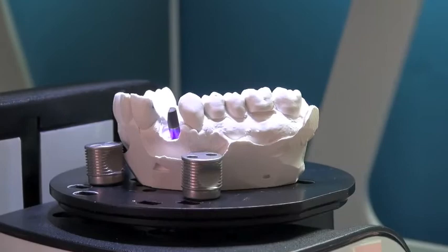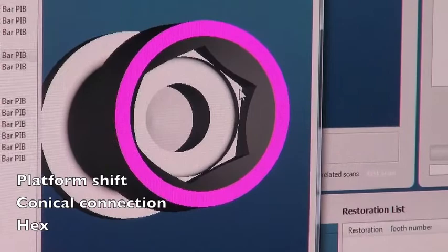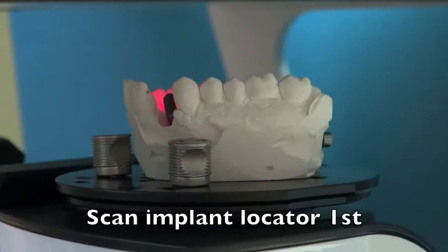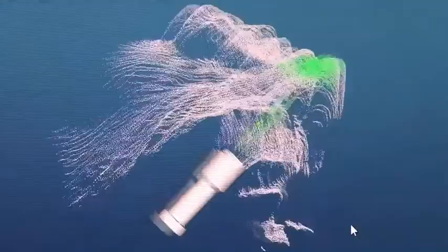Here's the platform shift in pink, the conical connection, and then inside is the hex and the screw channel right here. This connection is used to really maintain bone. The computer goes back and forth and optically scans the model, going through four different scans to create the models needed to make the screw-retained abutment. It then starts to render a 3D model.